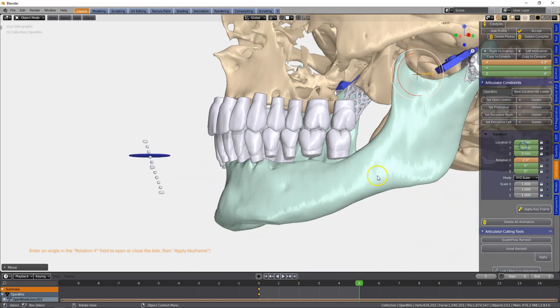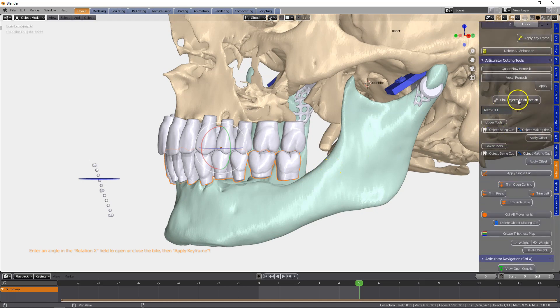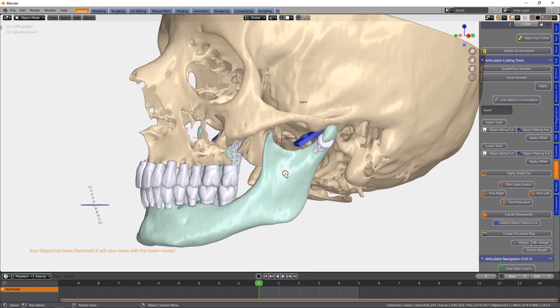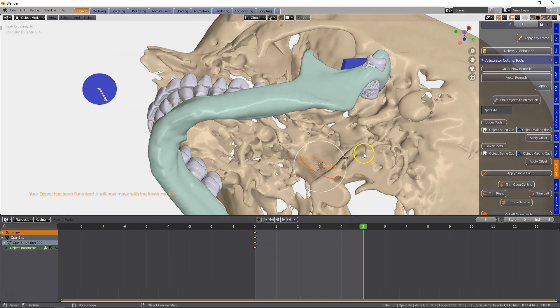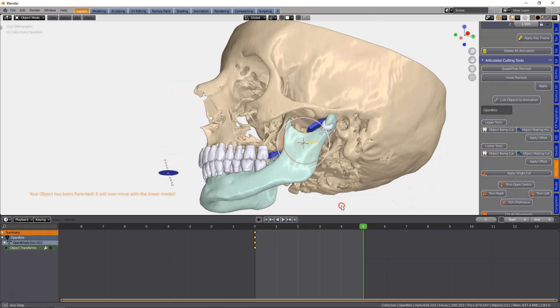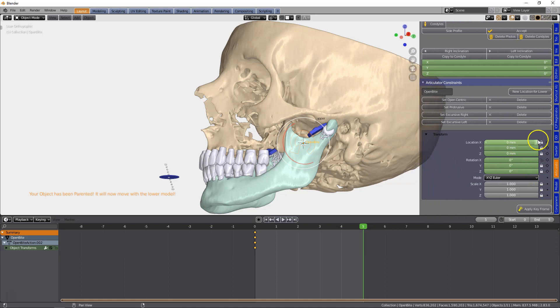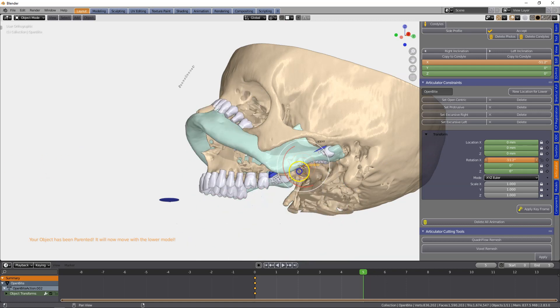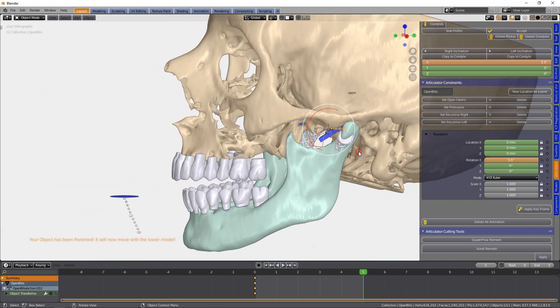If we open it up more, we can open as much as we like — at two degrees it'll be four millimeters open. We're going to link the lower teeth to the animation of the lower jaw by clicking on link objects to animation. These are the keyframes — make sure you are on keyframe number five when you are opening it. Zero keyframe is always where the jaw is in centric relation. You can use the slider and note how it pivots along the X-axis.